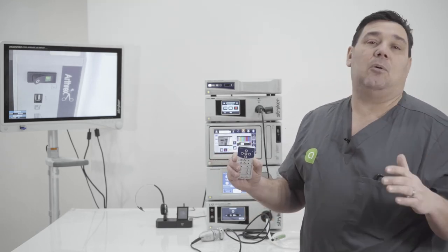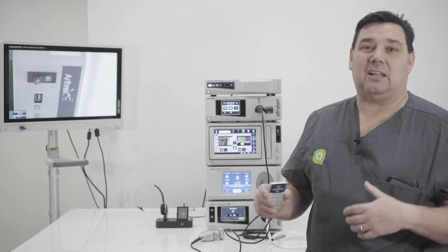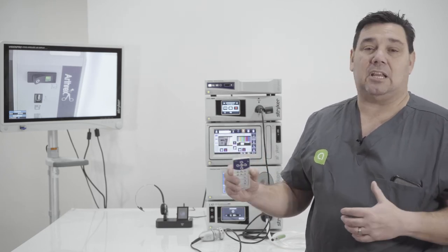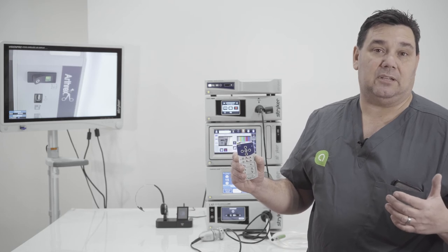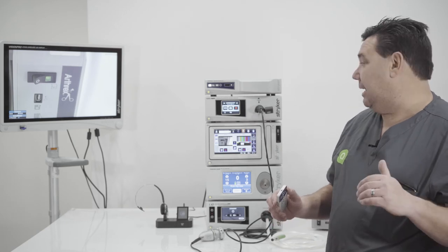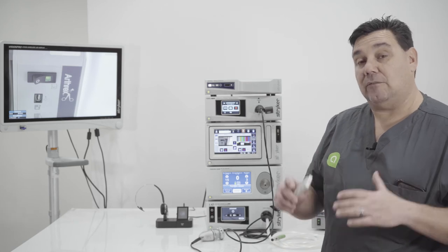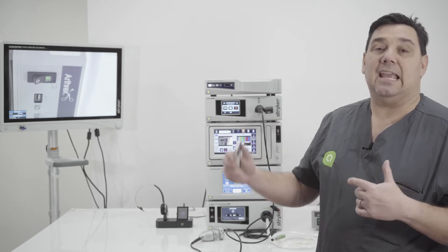For this video we set up the camera and the insufflator to show you the available options. With Device Control you also get a remote. The remote is great if you're a single circulator in the room — you're not tied to standing by the video tower to turn the light source on and off or put it on standby. We've set up three devices on the SDC 3: the camera box or CCU, the insufflator, and the light source — all running through a USB cable from each device into the SDC 3.